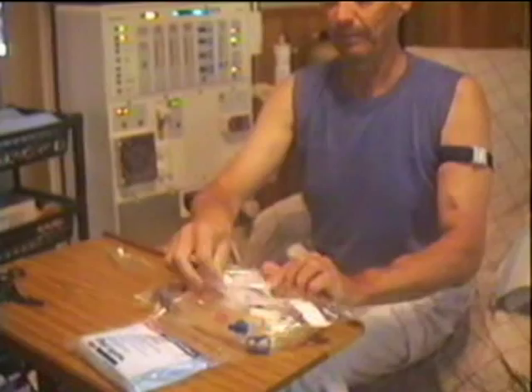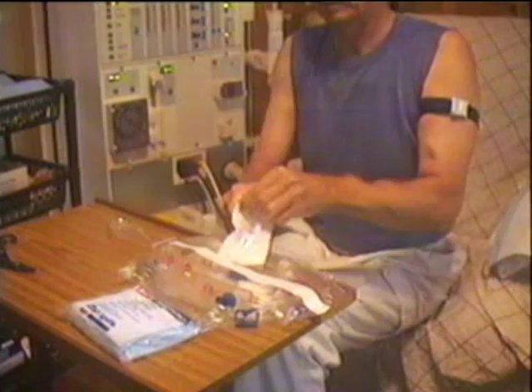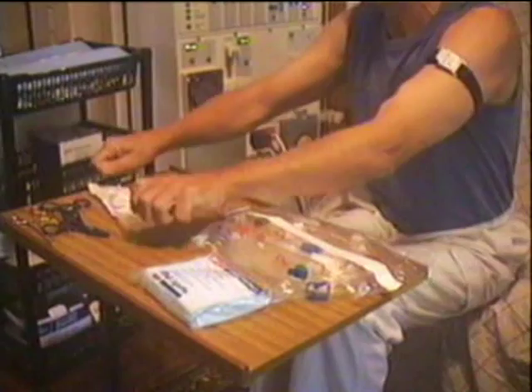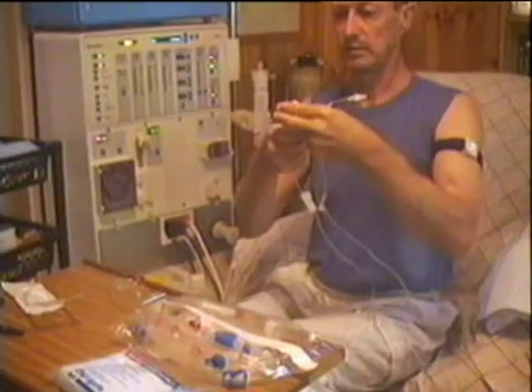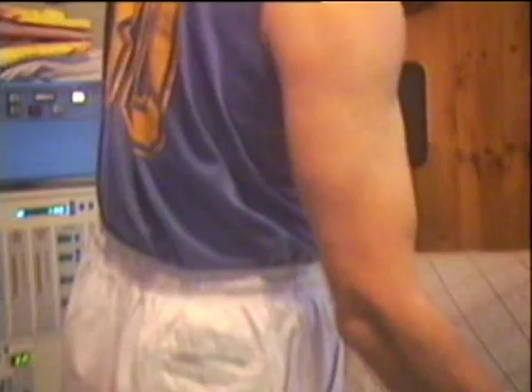I'll just unpack this pack. All these go on the machine. This attaches to close the seal, and this attaches to the saline — the first saline bag. I'll just prime that, open this barrel off — that'll fill it up with saline. See it coming out the bottom. Close it off and leave that up there.